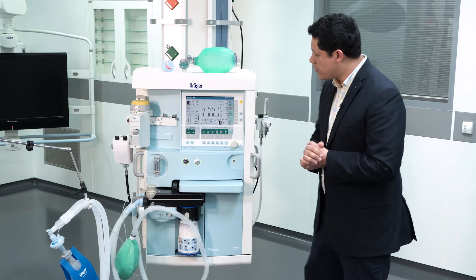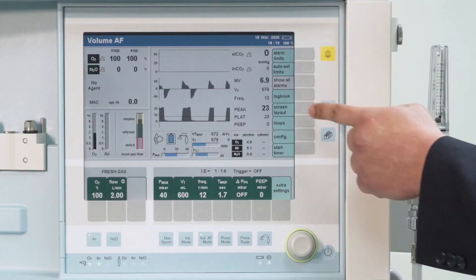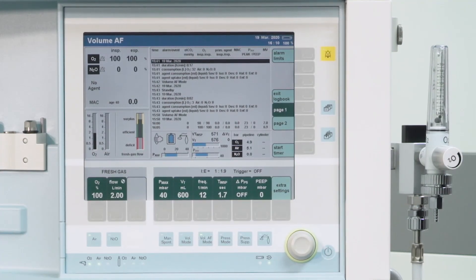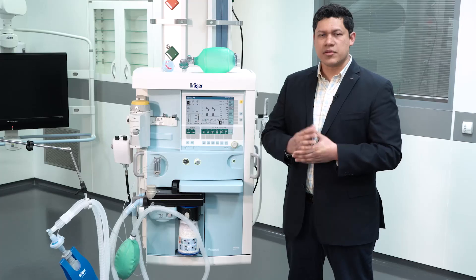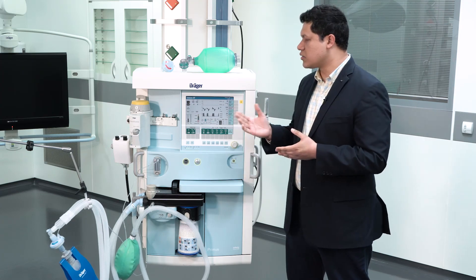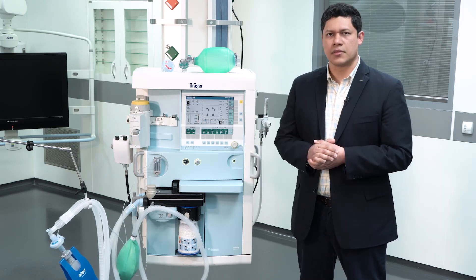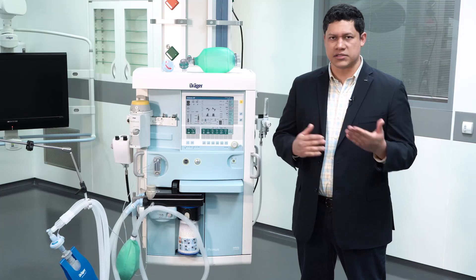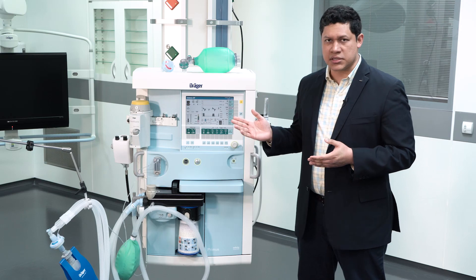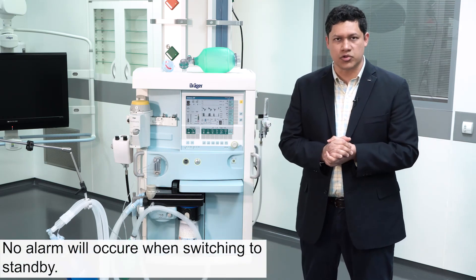If that is not the case, remember you can always check on the alarms by going into the logbook and verifying if something occurred in the absence of the user. Another important difference is that the alarms occurring on the anesthesia device will not be automatically transferred to the alarm central station. Additionally, alarm messages are not displayed and are not recorded once you have gone into standby.